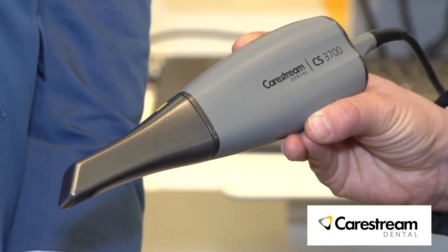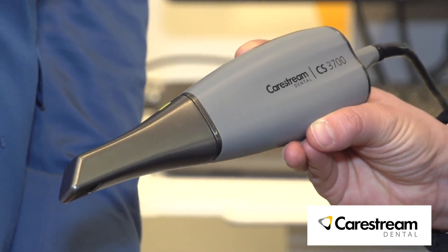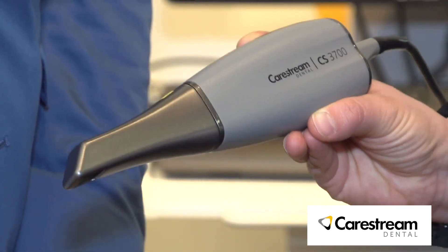So let me hear that right — you worked with Porsche, the car manufacturer, to help design it? Studio FA Porsche is the design agency. We really wanted to enhance the user experience using the CareStream Dental intraoral scanner. We have really improved the gripping of the scanner in order to have a better balance during the scanning experience in the dental practice. The dentist will have the option to choose from two colors to better match their dental practice expectations in terms of ergonomics, as well as experience — either in arctic white or in carbon gray.